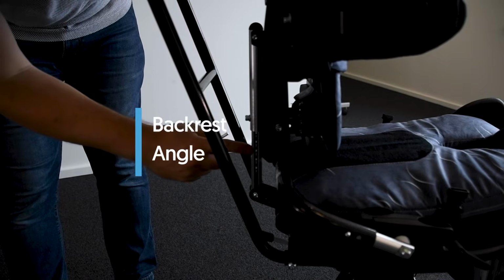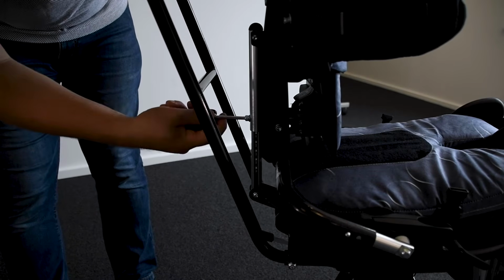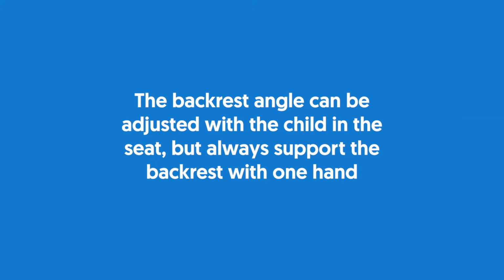Backrest angle. There are 2 angle indicator strips on either side of the back adjuster. The backrest can be angled by loosening the bolt. Select the position you require, then retighten the bolt securely. The backrest angle can be adjusted with the child in the seat, but always support the backrest with one hand.